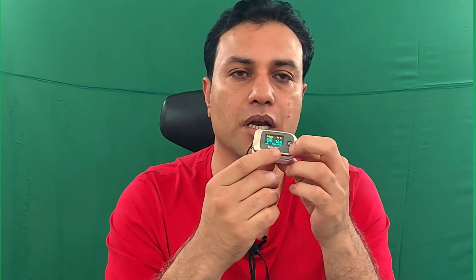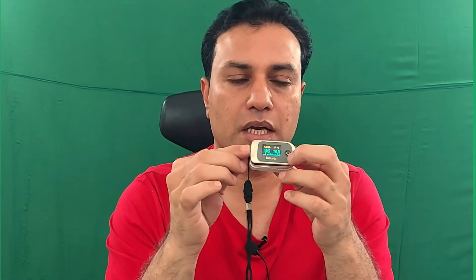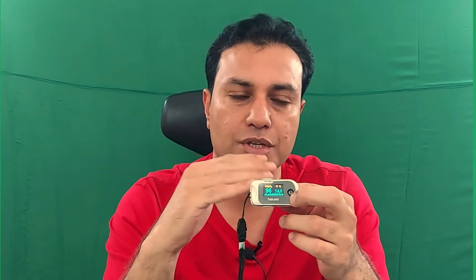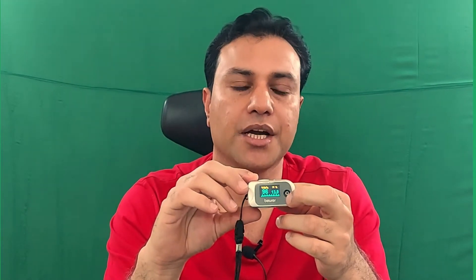The normal oxygen saturation for a healthy person is from 95% to 100%. Below 95%, or in more severe cases below 90%, requires medical attention.